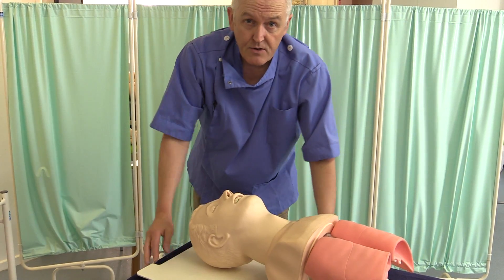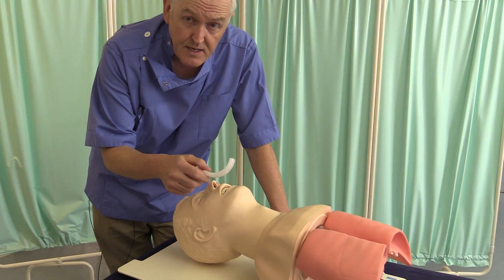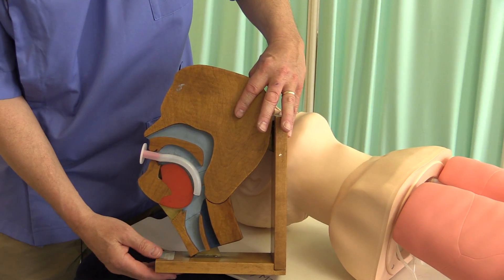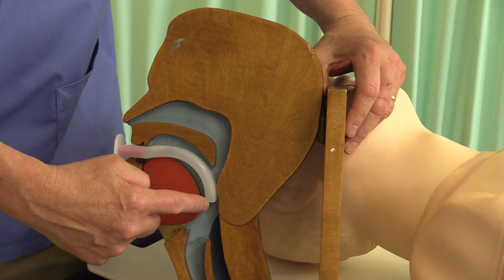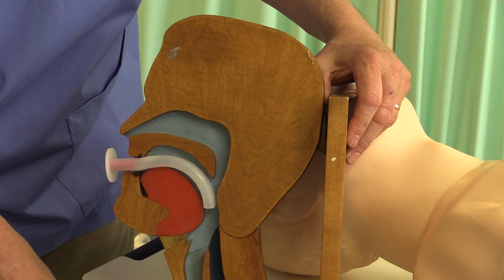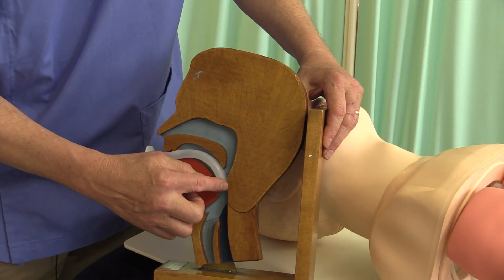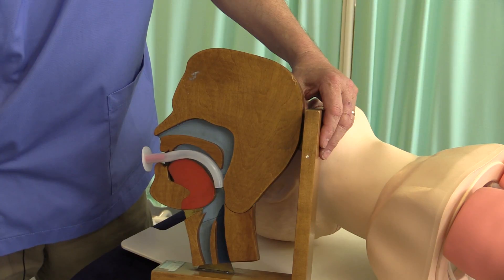In hospital situations we might use airway adjuncts. The most common is an oropharyngeal airway, which goes in the patient's mouth and takes air through the mouth down into the pharynx. It's important to know the patient could still vomit with one of these — the airway is not protected — but the OPA keeps the tongue out of the way, allowing air into the oropharynx and laryngopharynx.